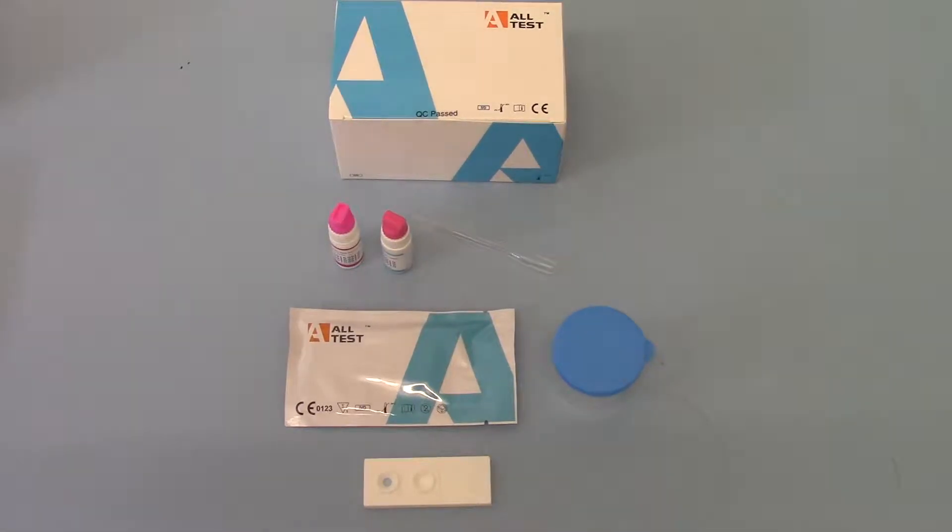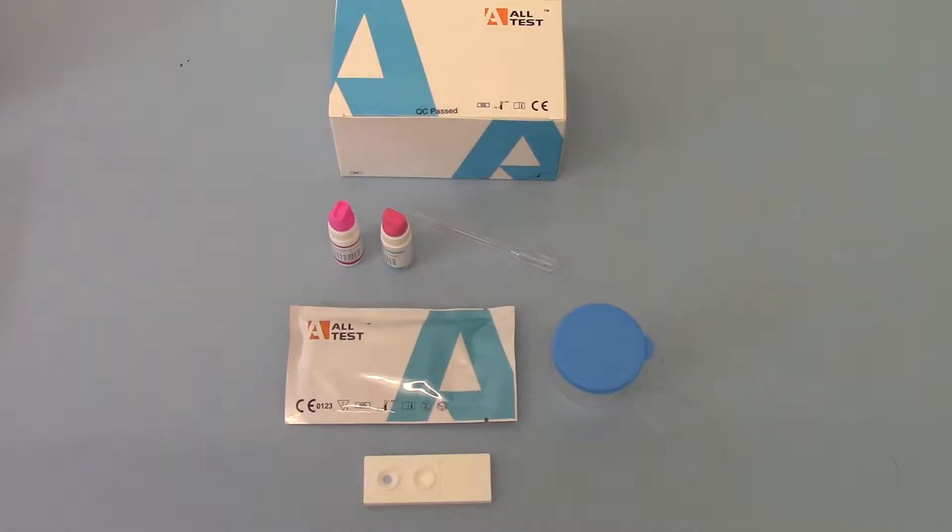Welcome to this product demonstration video produced by Access Diagnostics on the All Test Male Fertility Test Kit. This is a complete single test kit for home sperm analysis. It works to a cutoff of 15 million per mil and is a simple positive or negative test.